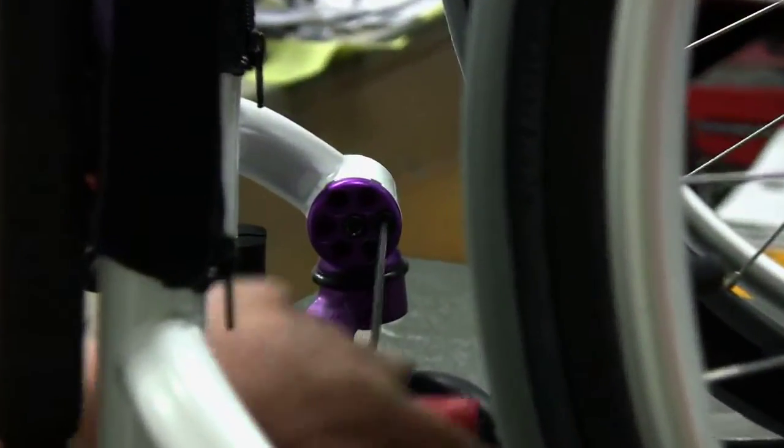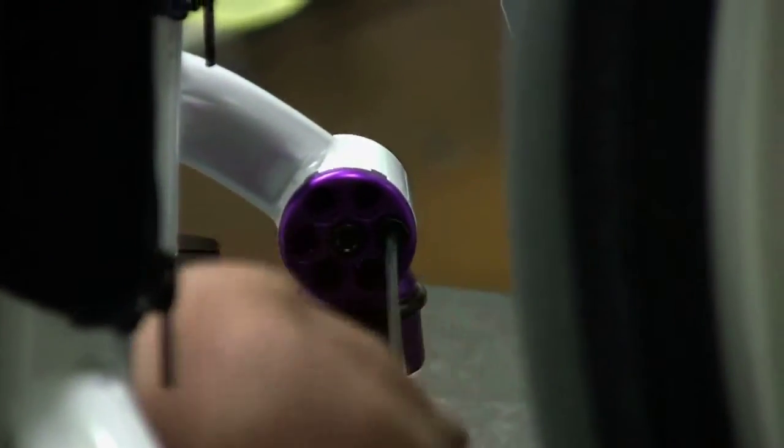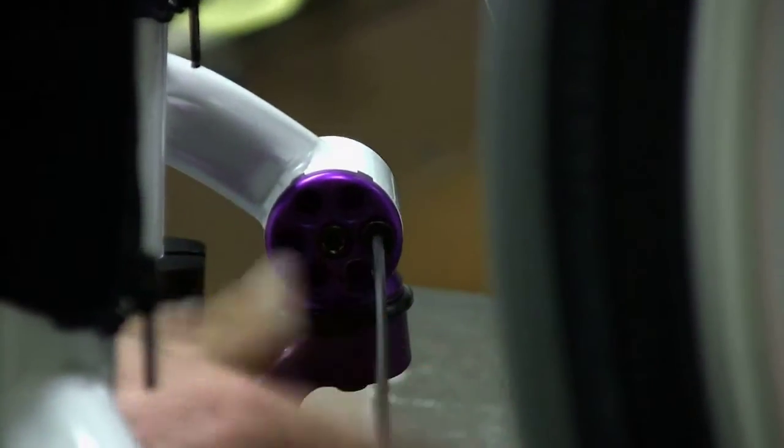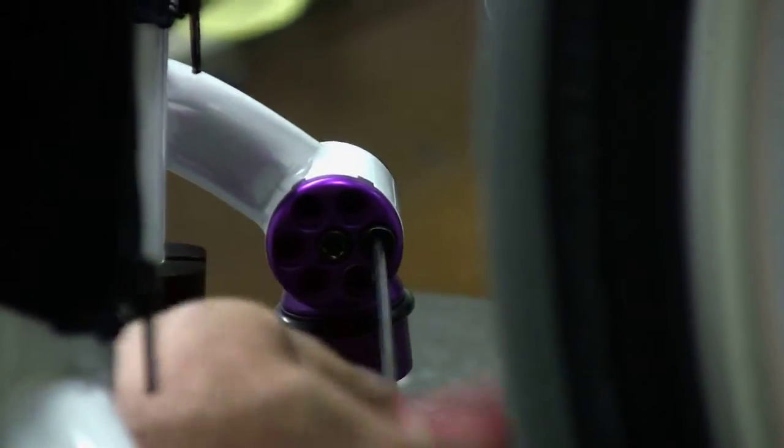Step 2: Using the 1/8 inch Allen wrench, remove Allen screw number 1 and the washer. See figure 55 to 57 in the owner's manual.